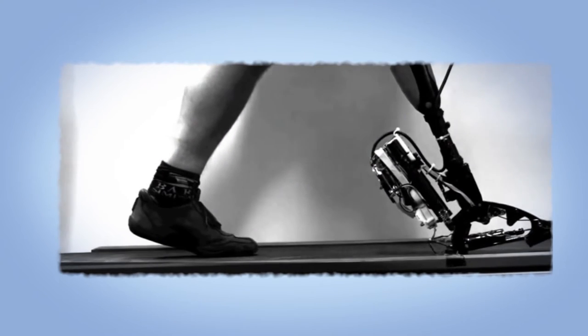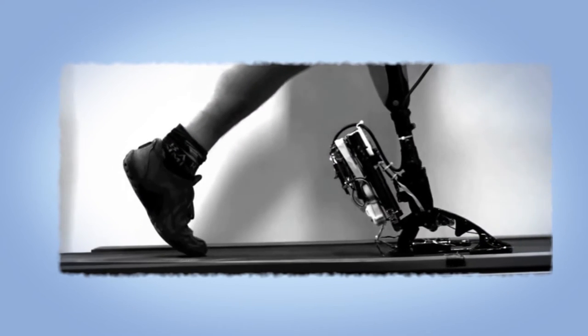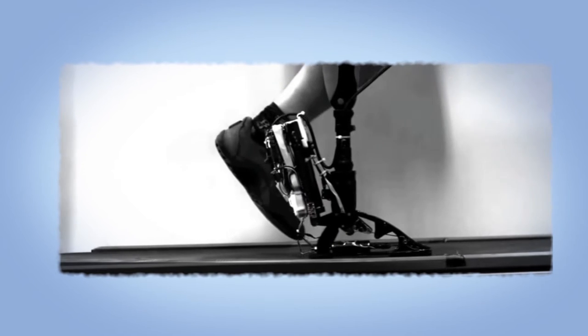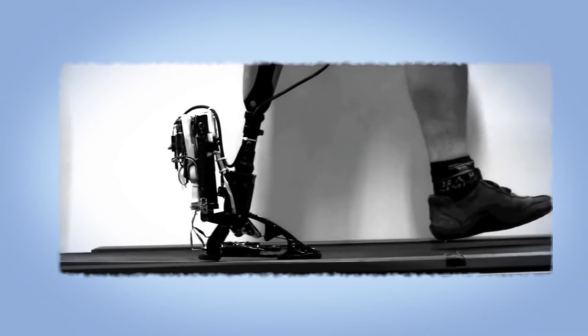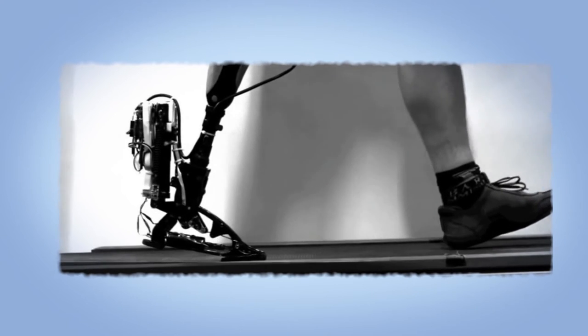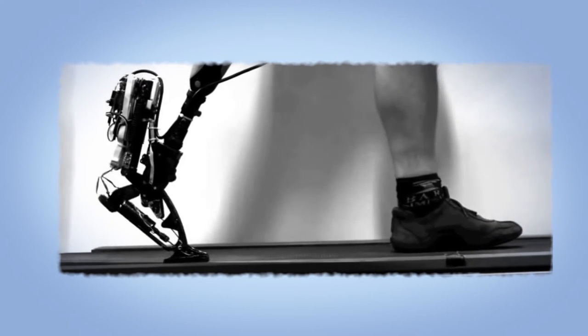That's where bionic feet come in. These models use pneumatic systems or motors for stabilization or propulsion. But only propulsive feet add more power than what's stored during movement and are considered state-of-the-art. We'll focus on these.